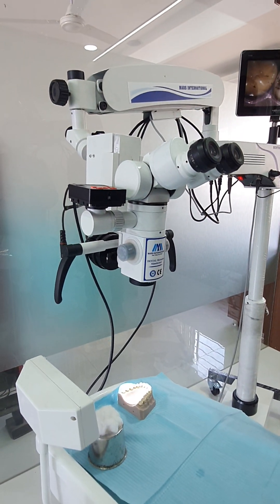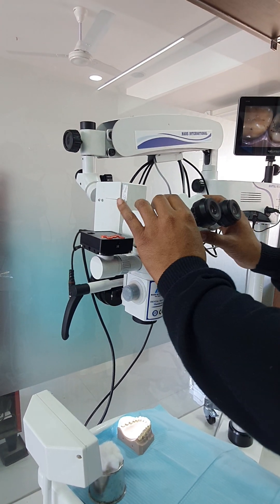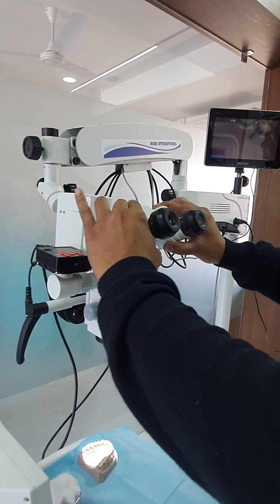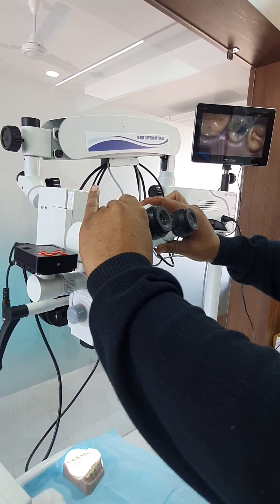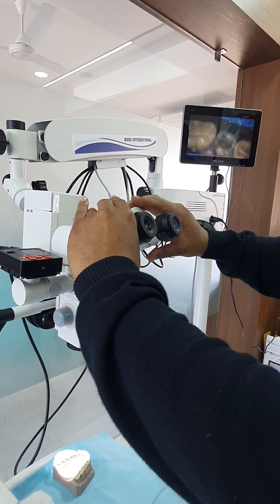When you are using the microscope, the first step is to adjust the IPD. You can adjust the IPD according to your requirement.